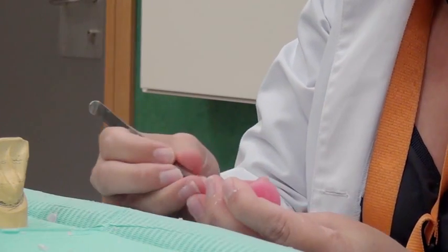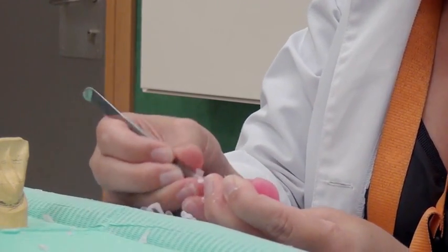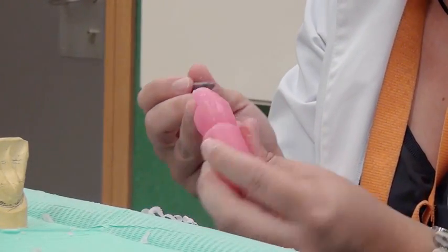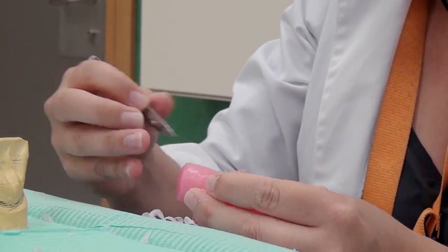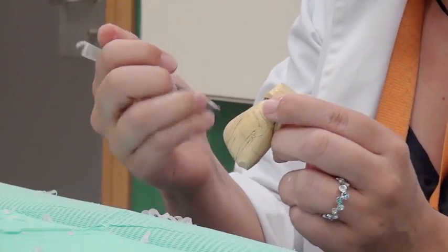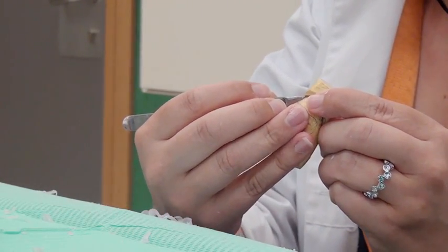The base of the cingulum is narrowed by removing wax from the mesial and distal lines towards the palatal surface. The tooth would appear strangled if wax were removed buccally.